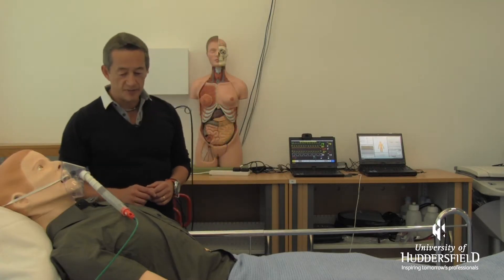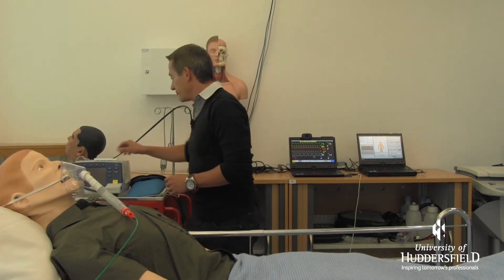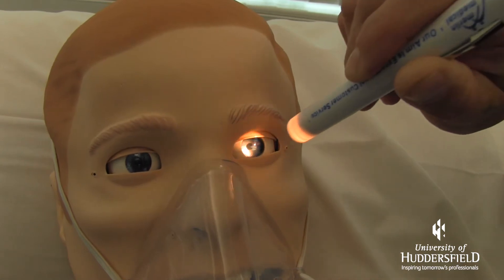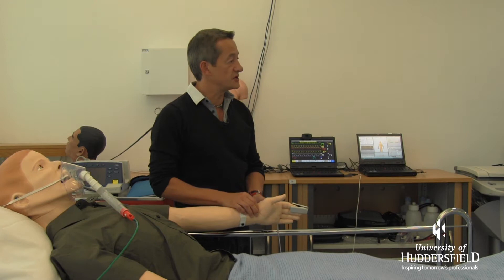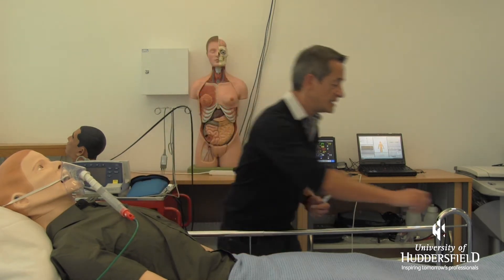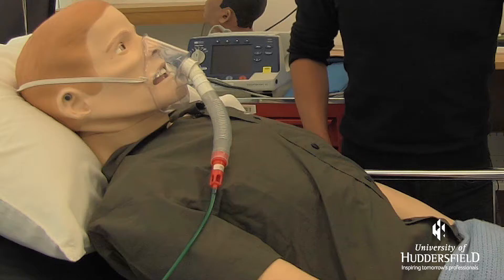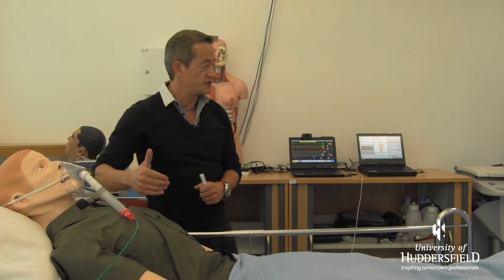You can see that he is actually blinking and he does have real pupil reactions — if we shine a light in his eyes his pupils will constrict, and we can change those settings so they can be abnormal or normal. He has pulses in exactly the same places as you would expect on a real human: in his wrist, in his feet as pedal pulses, and in his neck. His chest is moving, with both sides of the chest moving, and we can also listen for breath sounds.